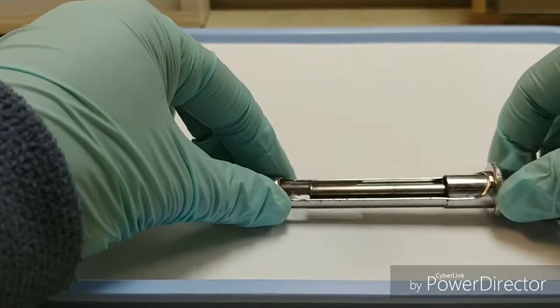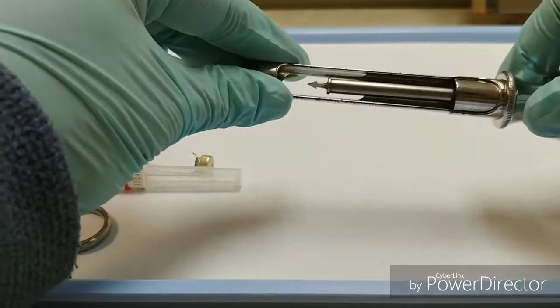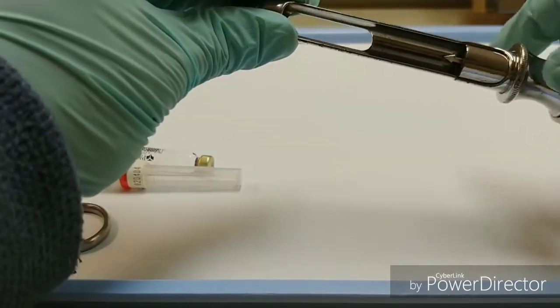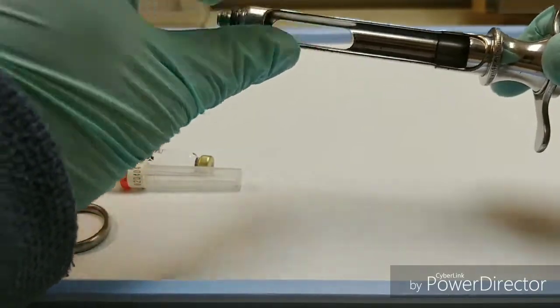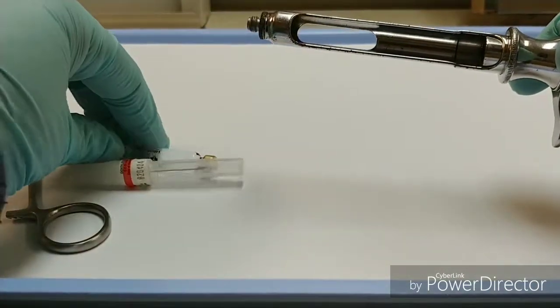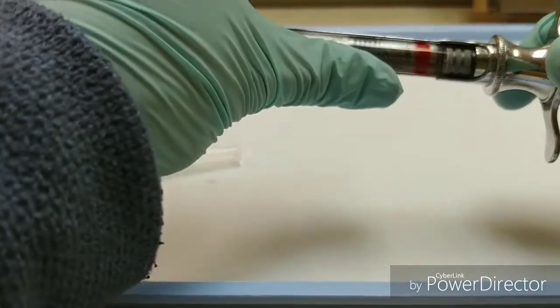So to start with, I'm going to insert my cartridge, and to do so I'll have to retract that piston back just to make enough room in that large window to accommodate my cartridge. Then I can insert it like so.